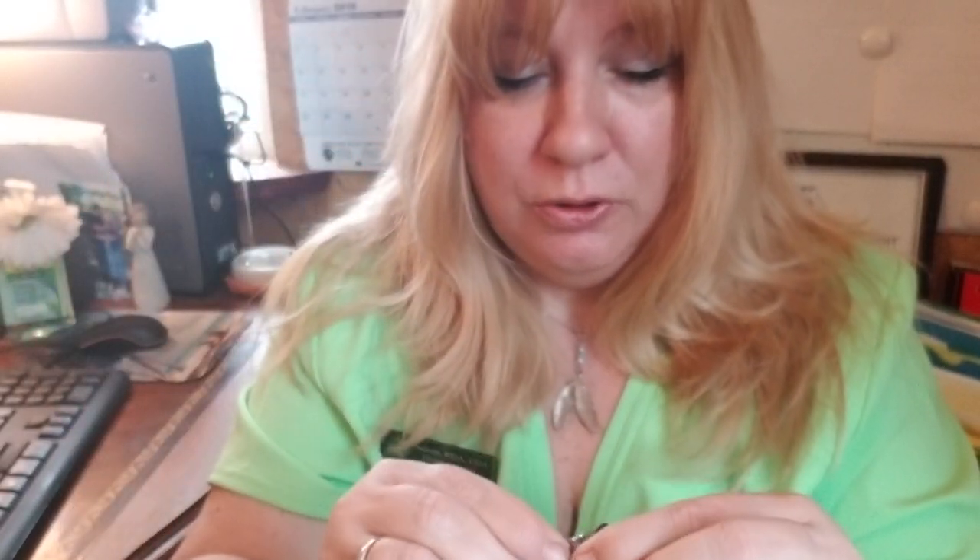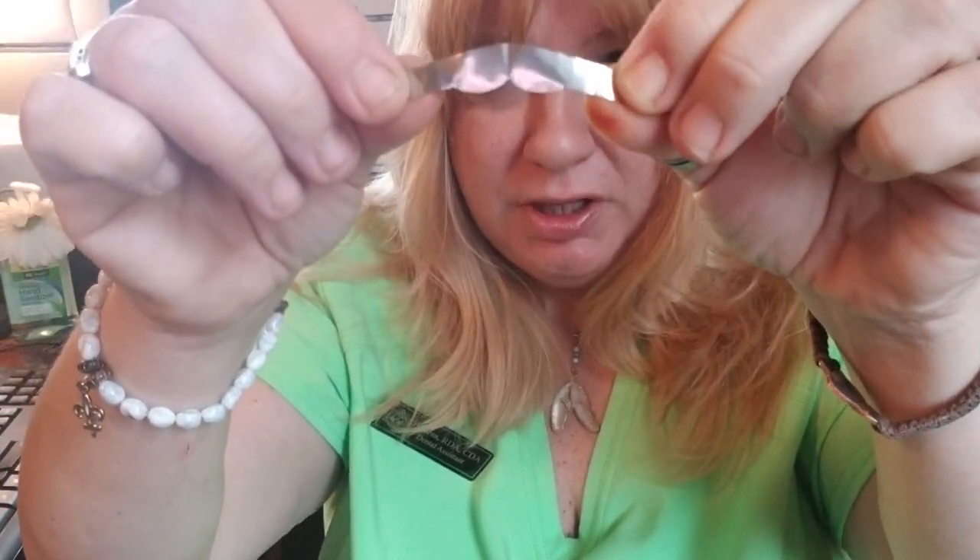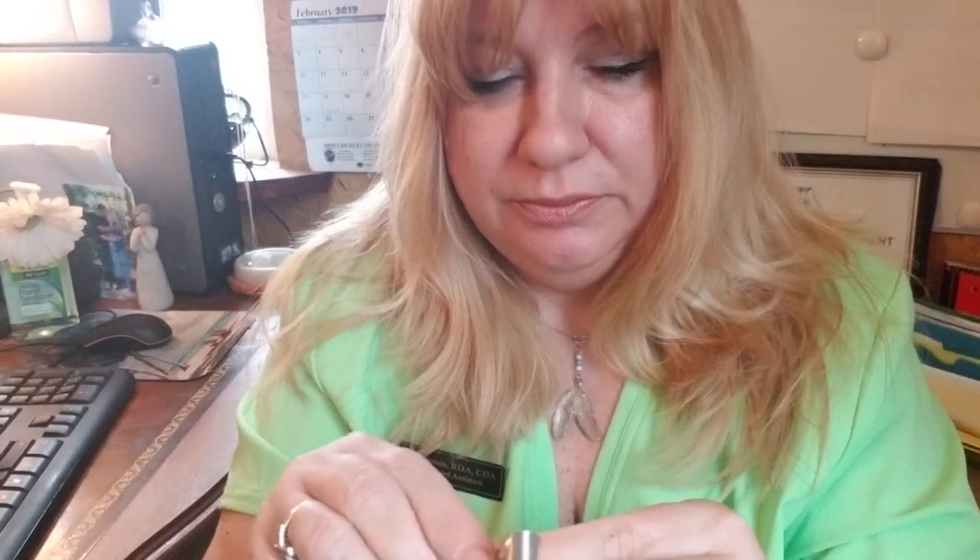It has little butterfly wings on it. What you're gonna do is fold it — not crease it — right here. You don't want to crease it. Then you're going to hold it at the very end and flip it to see which side is larger. The larger side is the smooth side. Because this is a molar band, the wings at the bottom are gonna go around the gingiva, so you fold it like that — remember, not to crease it.